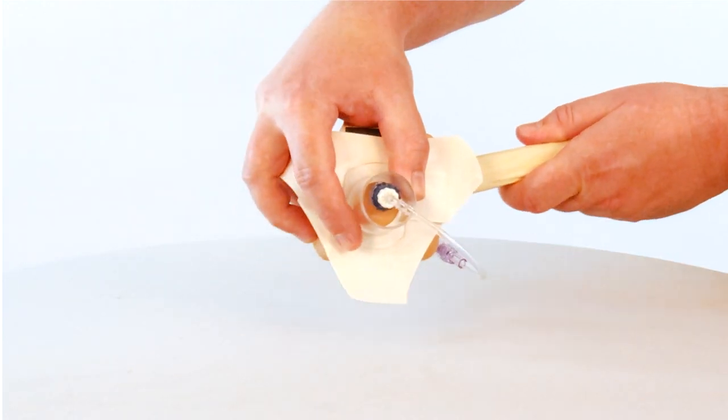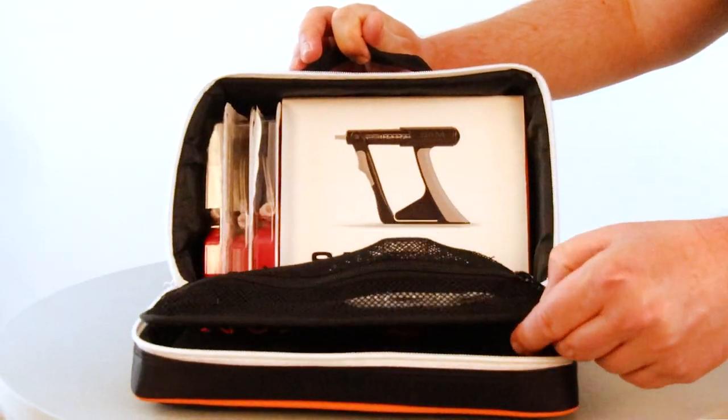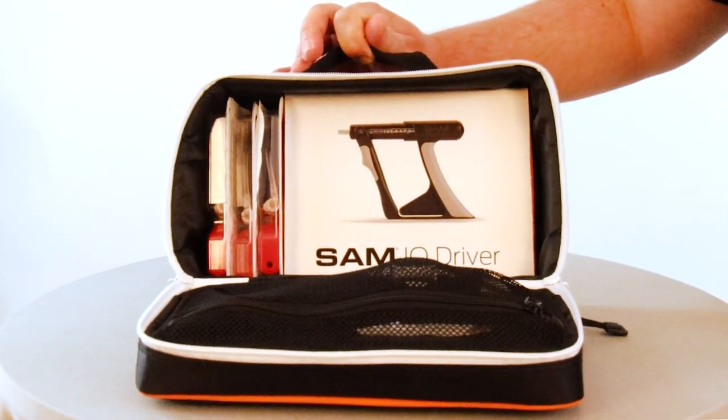SAM also offers a field storage case with weather-resistant nylon and an interior divider for optimal organization.